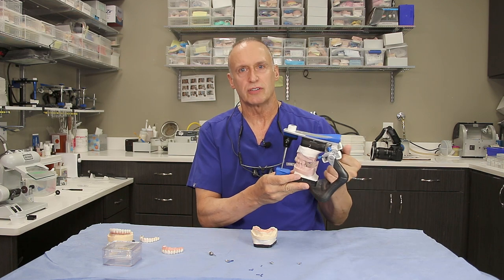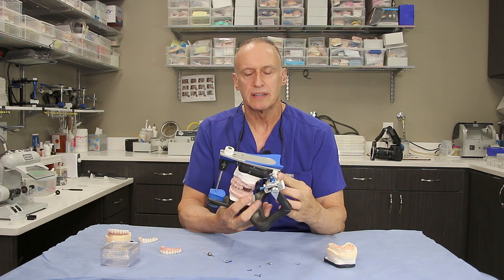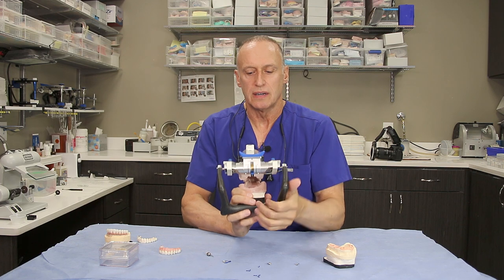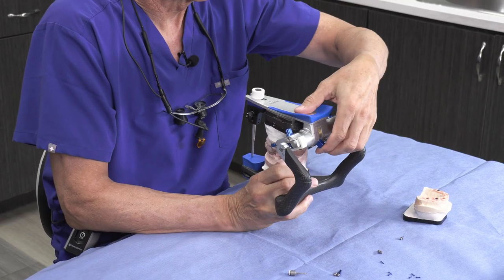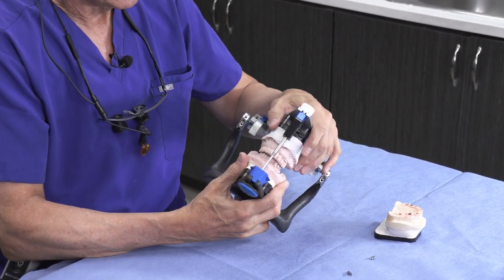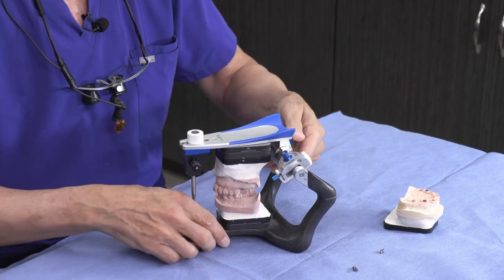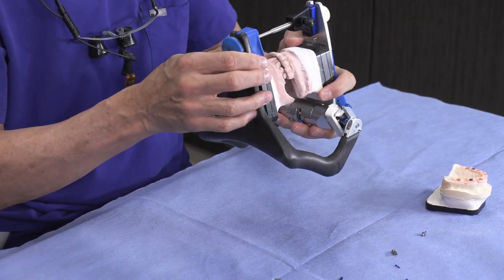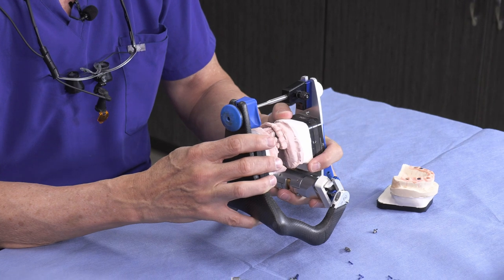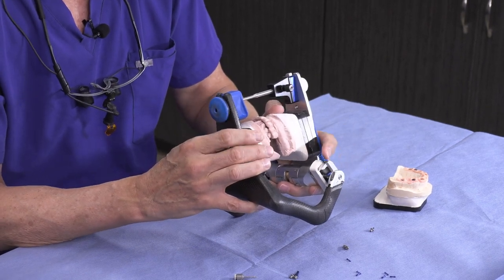First thing — this big metal device right here — I want to describe what this is. This is called an articulator. In dentistry, what it does is it simulates human jaw anatomy. On an articulator that is adjustable, we can flip this switch and move the jaws like human jaws. These condyles are set to mimic the angle of the human condyle. We can set this switch down and it simply opens and closes like a hinge, or we can open it to adjust the bite. This simulates functional movement — while you chew or while you grind your teeth.